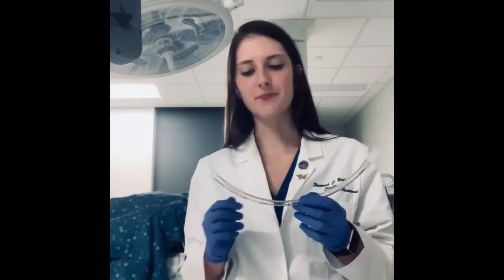Give it a couple minutes. The mechanism behind this actually goes all the way back to chemistry. The ETT, the endotracheal tube connector, is made out of synthetic plastic commonly known as polyvinyl chloride. So when we take an alcohol wipe to it, we're simply removing — or at least solubilizing — the plastic plasticizers, creating a rougher surface and promoting better adhesion.